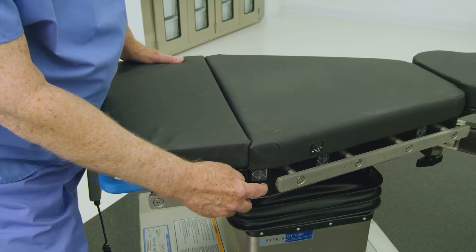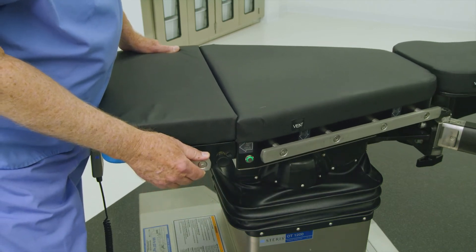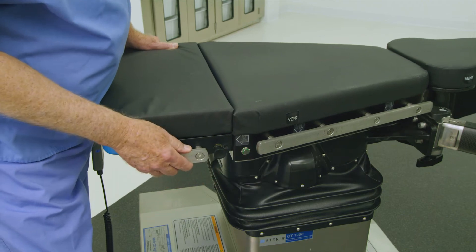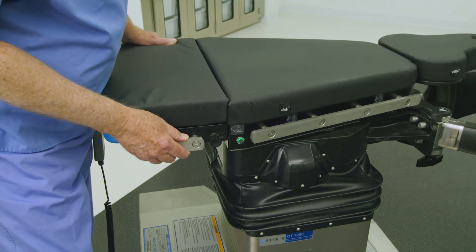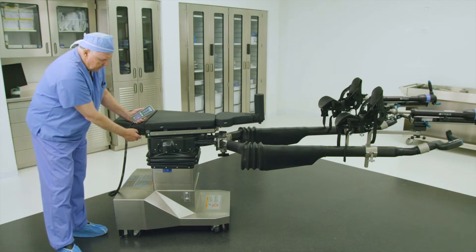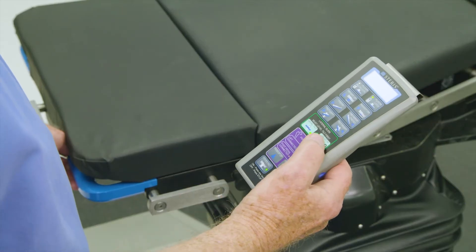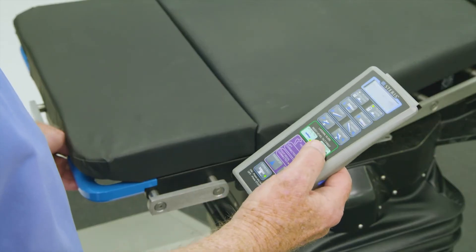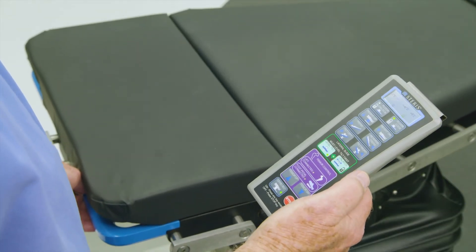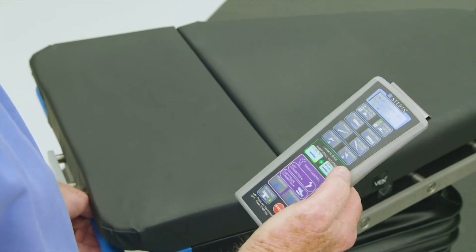Press and hold the manual green unlatch button located on either side of the tabletop, and then physically push the tabletop laterally left or right until it locks in position. Alternatively, the tabletop can be translated by unlatching the lateral slide through the buttons on the primary hand control.